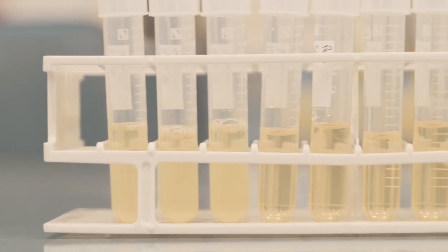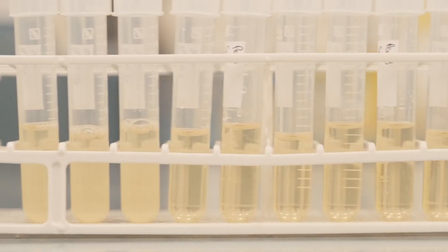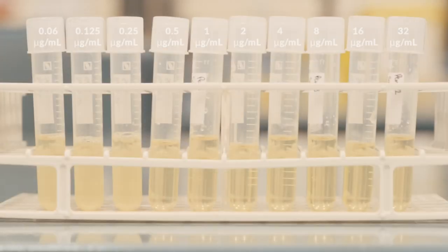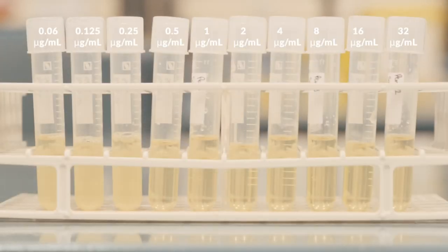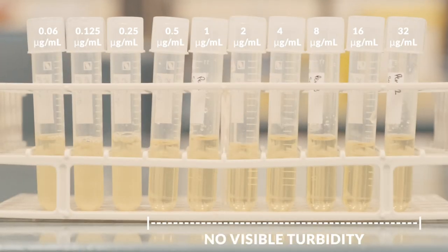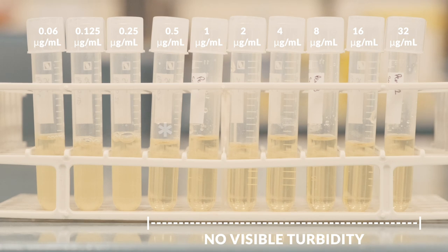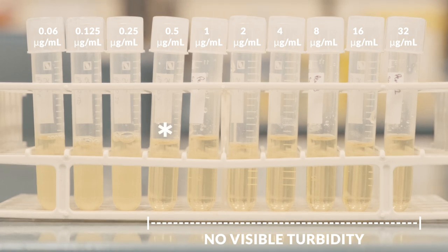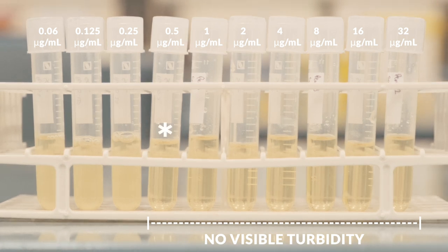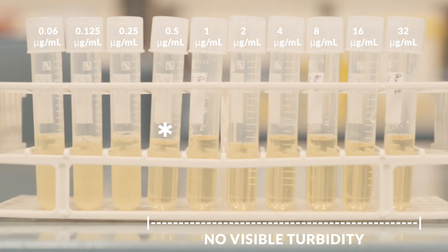An antibiotic's MIC is the lowest concentration that will inhibit bacterial growth. We measure this by performing serial dilutions of the antibiotic and adding them to the same concentration of bacterial cells. Amongst the tubes with no visible turbidity, the one with the lowest concentration of antibiotic added is what we're looking for. This concentration is the antibiotic's MIC for this bacterial strain.